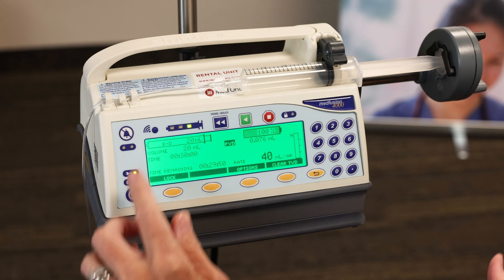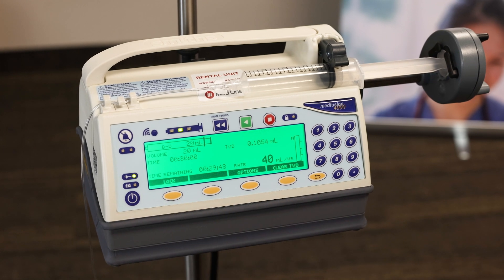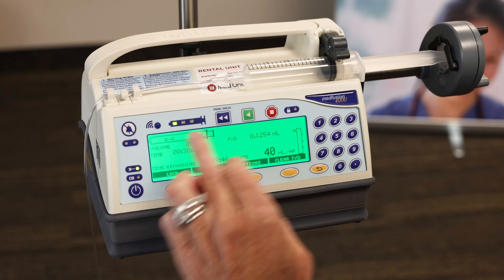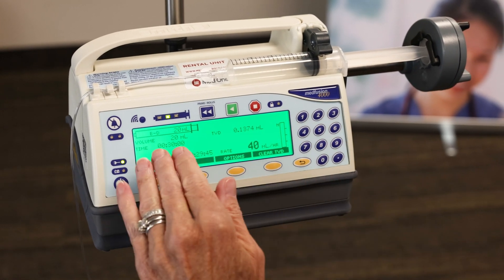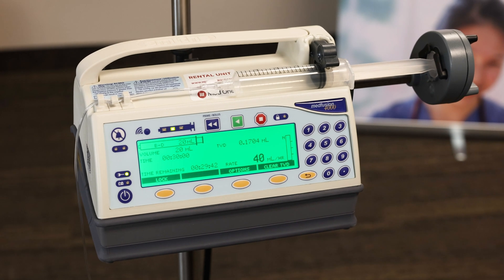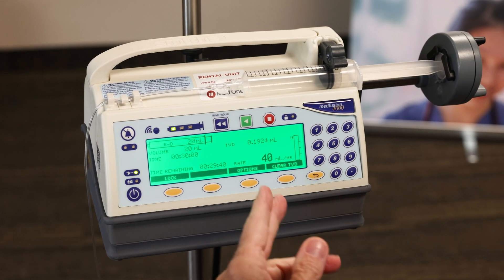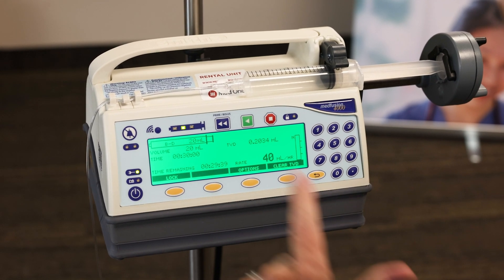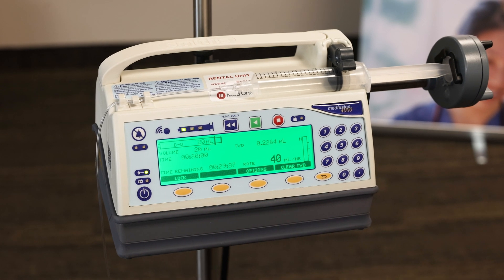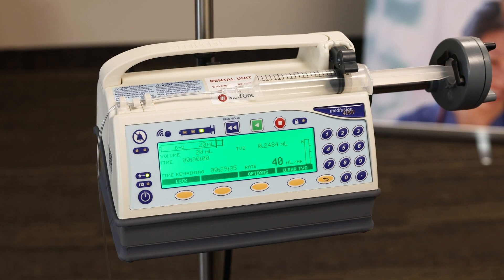The screen is a little bit different from the other intermittent and continuous infusions of dopamine, because there is no drug name. The only thing we have here is our syringe size, the time, the time remaining, and our total volume delivered — same as before — and then our 40 mLs per hour.